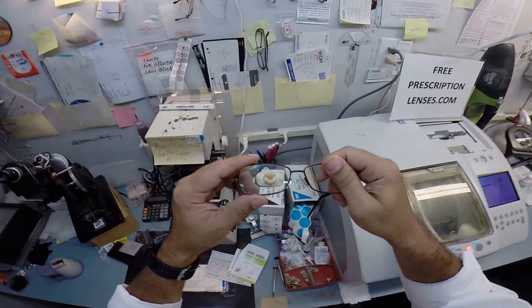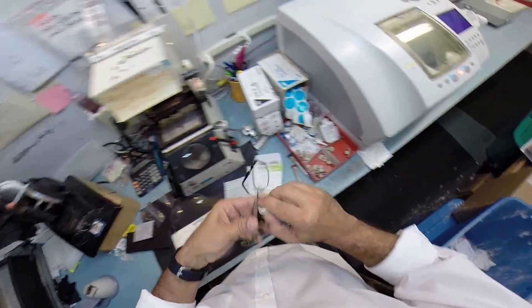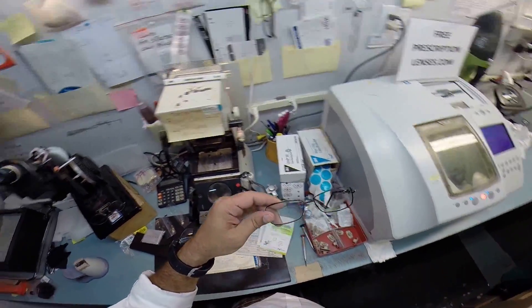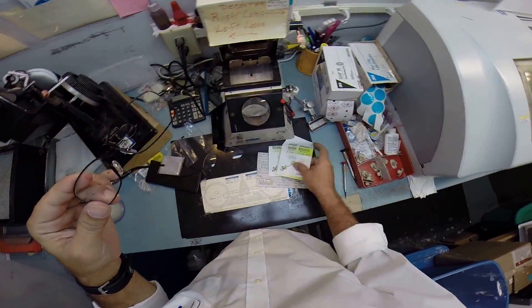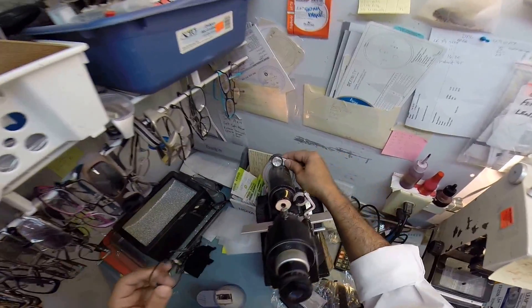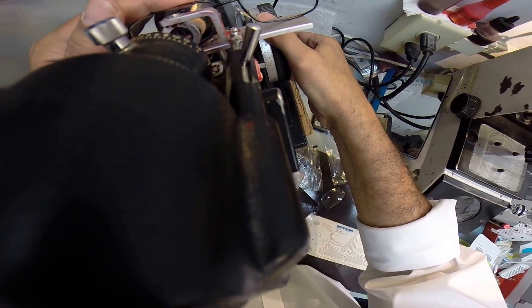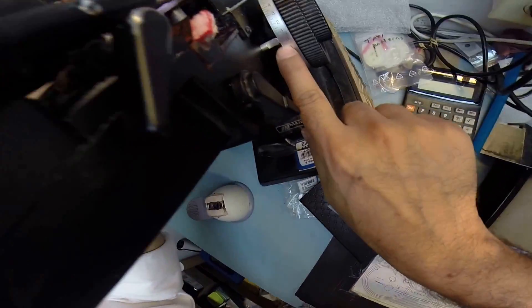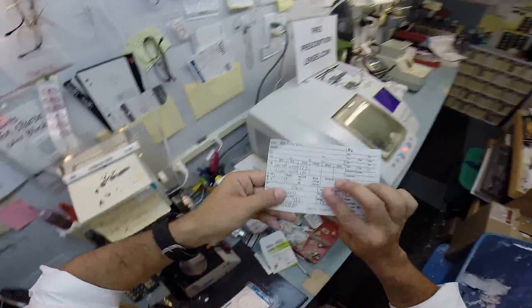Okay, so this block is no longer needed, so I'm going to go ahead and remove that. Pull the sticker off — I'm going to leave those red dots on there for now. I'm going to use that to measure later, but I want to spin the axis wheel back to 177 to verify this lens is cut perfectly. I'm going to put that in right above the red dots at your optical center. And I'm getting plus a quarter — one tick mark — plus the zero. Then I'm on minus 75 because you have one diopter of astigmatism.